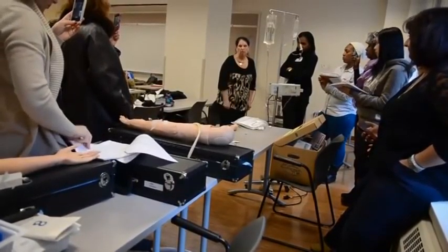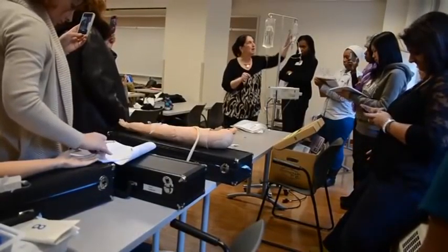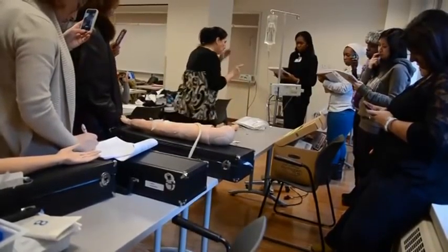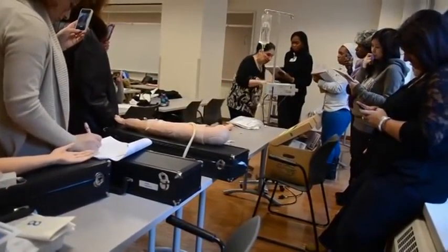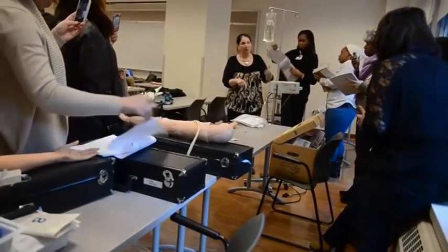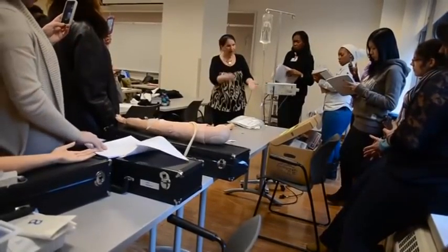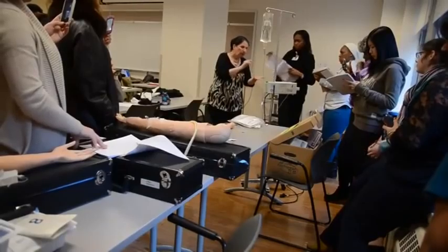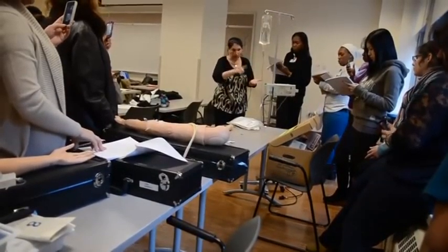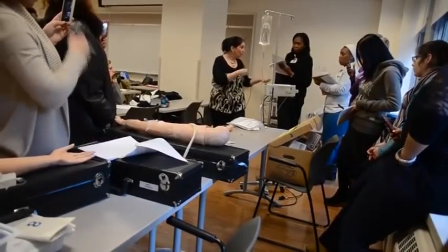Now we're going to do three — and three is where you walk in and find your patient hooked up to a pump. We're not going to ask you to set the pump. Power is on because it's going to be on. Put the rate in, then the volume to be infused — that's the amount in the bag — and then press start. When it's done, this takes over and goes back to where it was. That's the beauty.